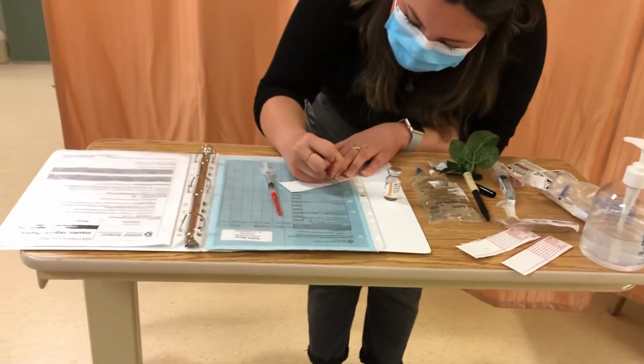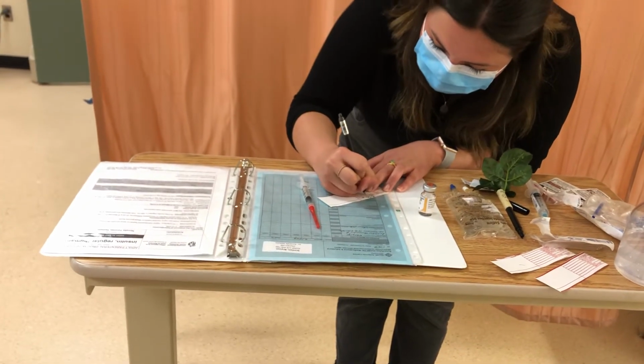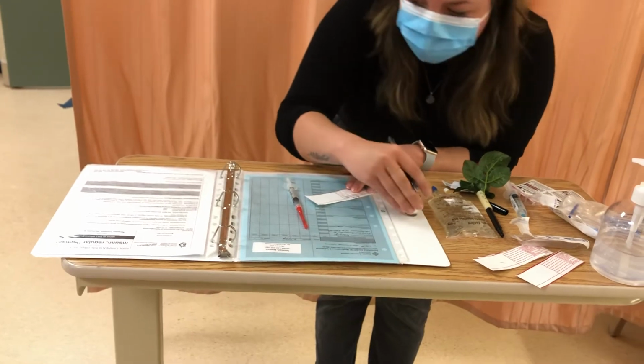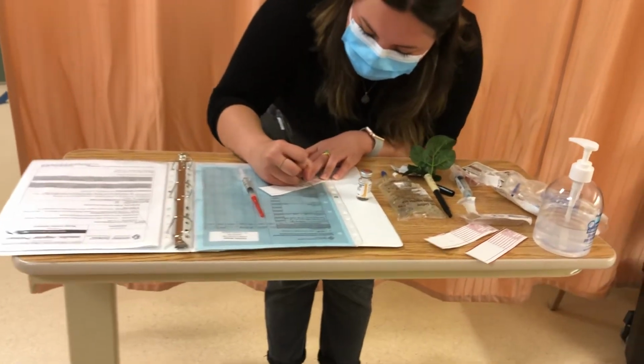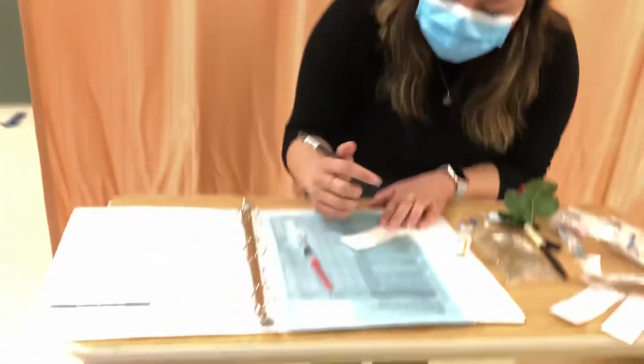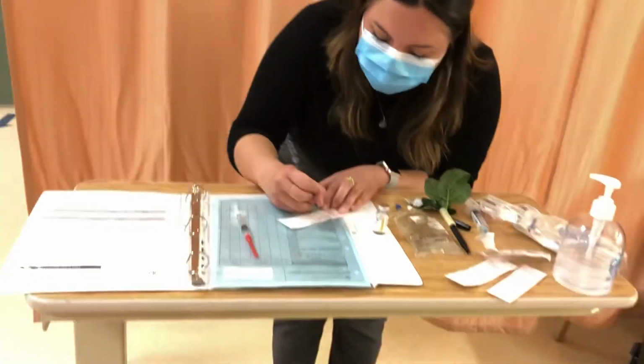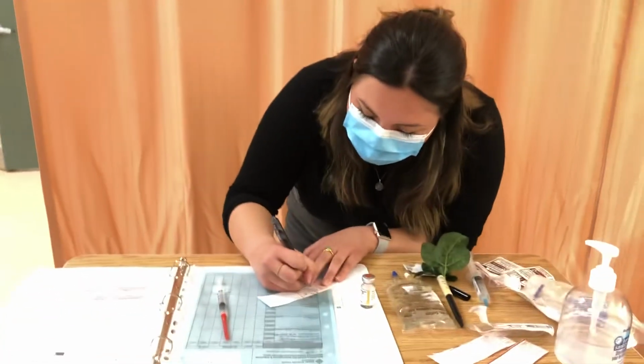So this is Insulin R. The dose is 100 units. As I've checked on here and I've checked on the PDM, the volume is 1 milliliter. I confirm that I have 1 milliliter in this syringe. I'll show it during my second check. The diluent, there is none. Concentration here is 100 units.